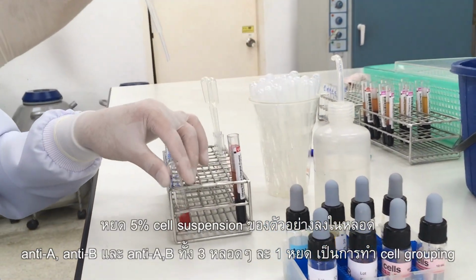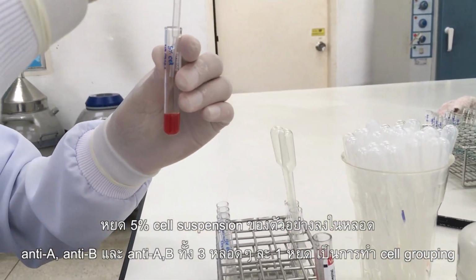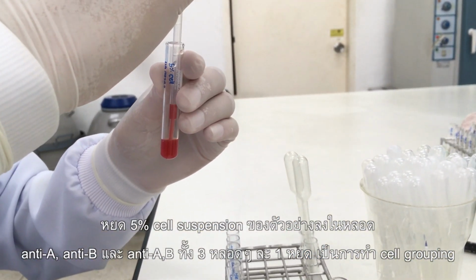Transfer 1 drop of 5% cell suspension to all tubes in a set of cell grouping.